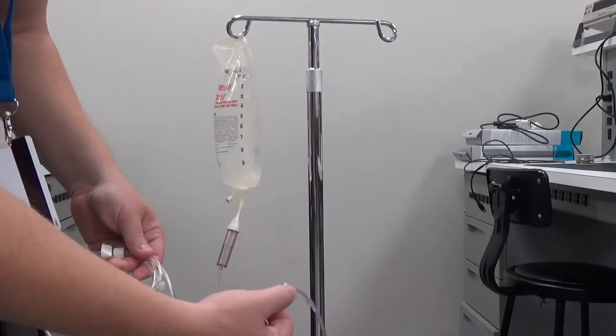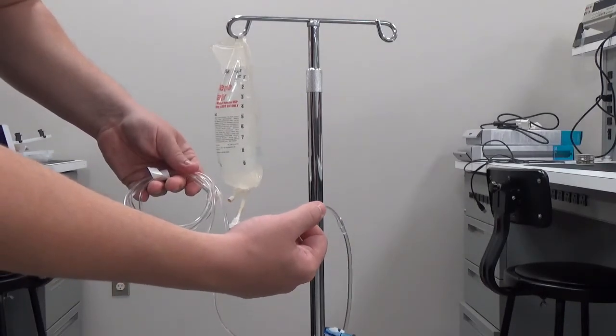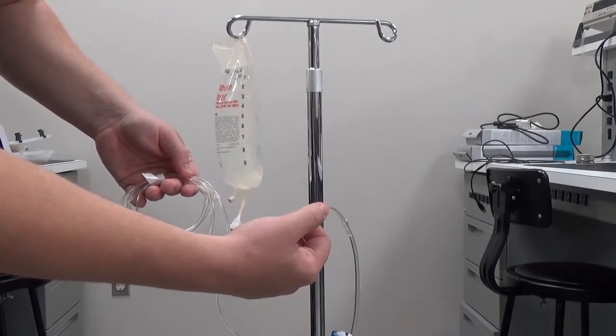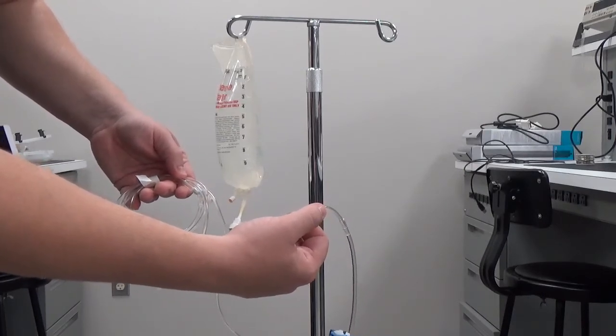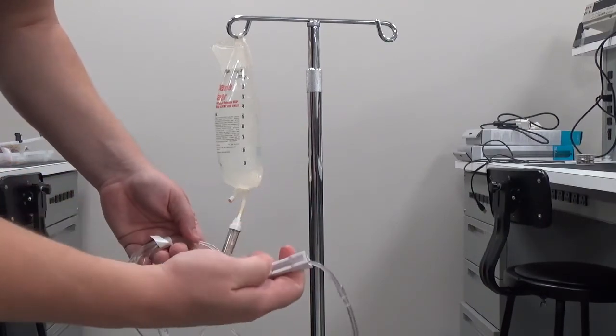It's almost at the end here. I know you can't see it. You just want to follow it until it's almost at the end. Still going through. And close it once it reaches the end.